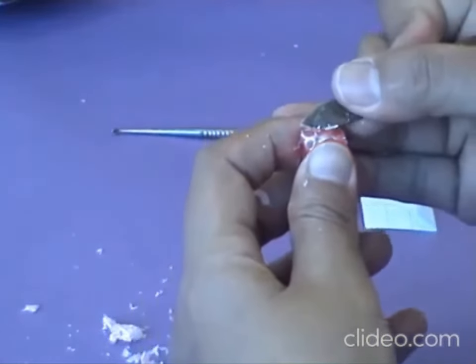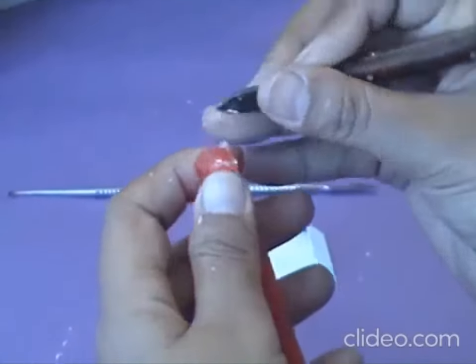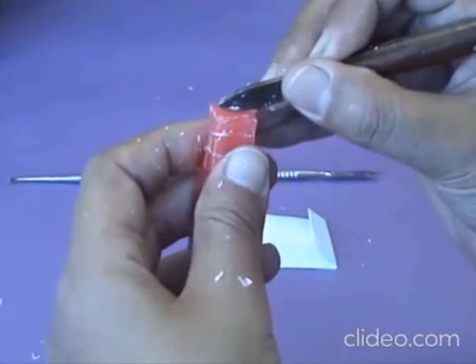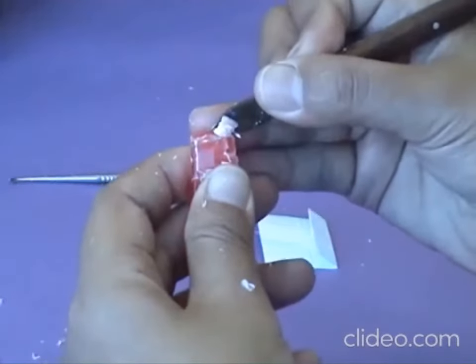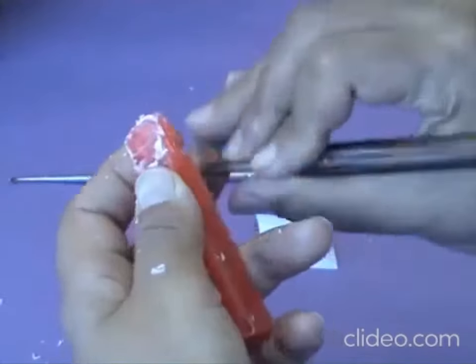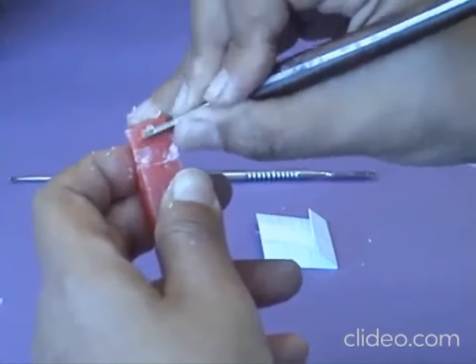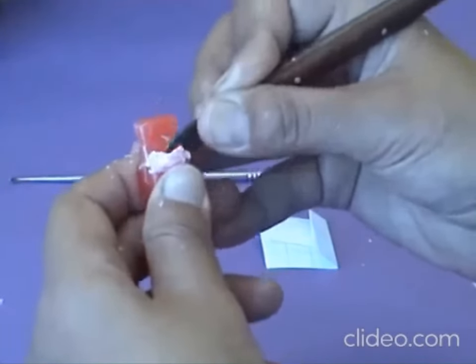The same process is done for the distal aspect, cutting into three planes. The first plane goes from the midline to the level of the distal cusp slope, removing all excess wax and smoothing the plane. Redraw the cusp slope level as reference, then cut from the cusp slope to the cervical line going inwards. Take your time removing excess wax — do not hurry so as not to over-cut. Then cut the root portion straight downwards.